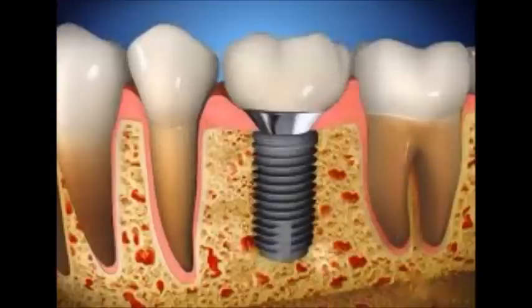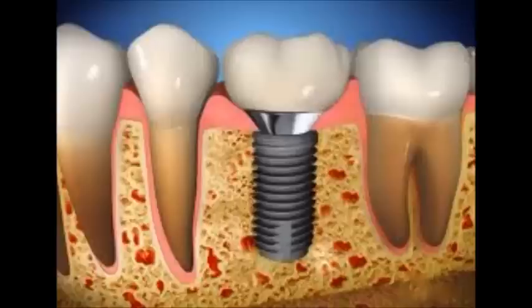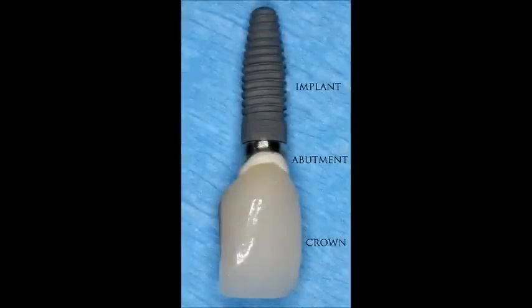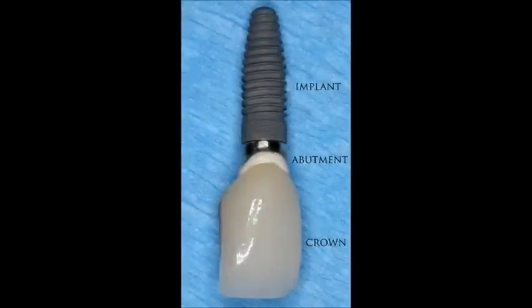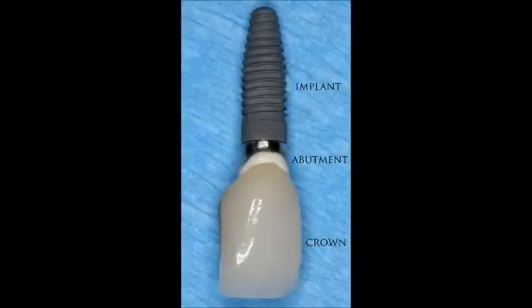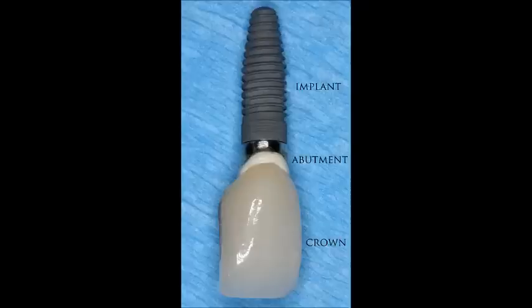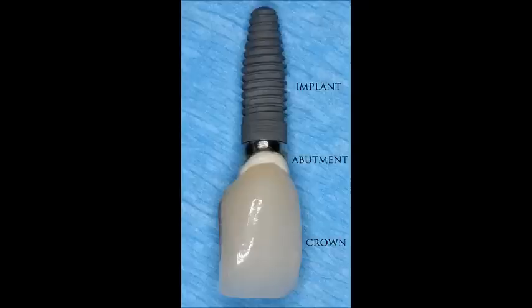A dental implant is a surgical component that interfaces with the bone of the jaw or skull to support a dental prosthesis, such as a crown, bridge, denture, facial prosthesis, or to act as an orthodontic anchor.